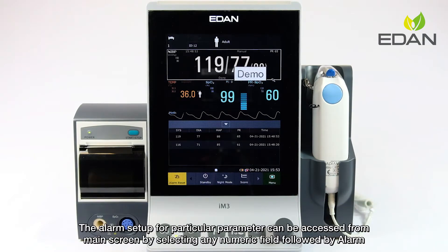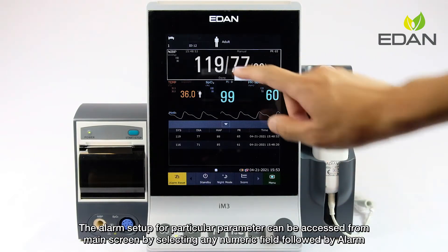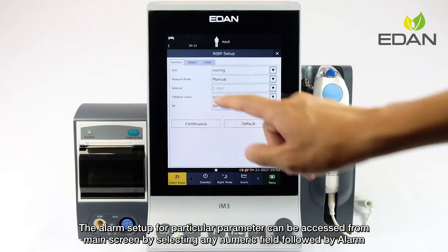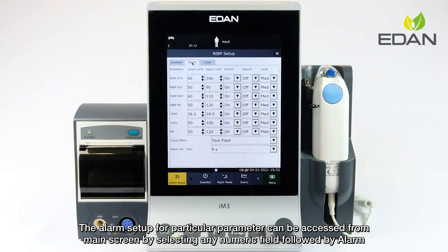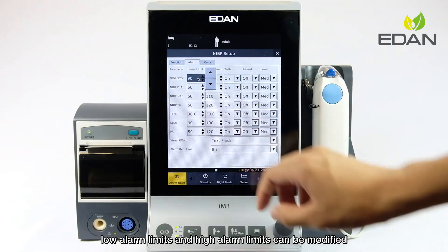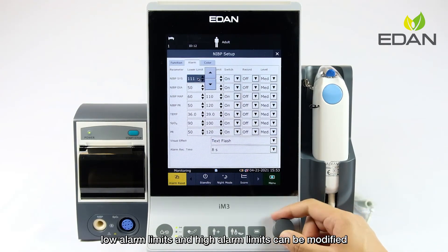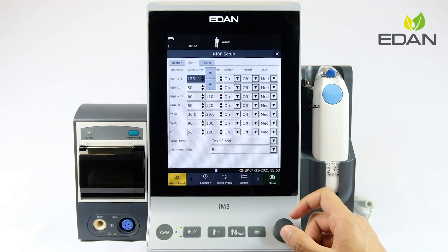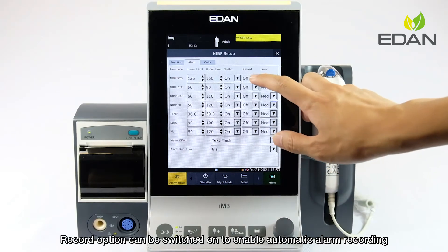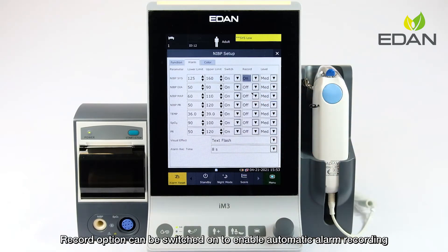The alarm setup for a particular parameter can be accessed from the main screen by selecting any numeric field followed by alarm. The record option can be switched on to enable automatic alarm recording.